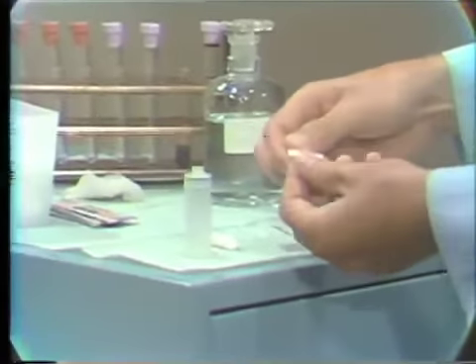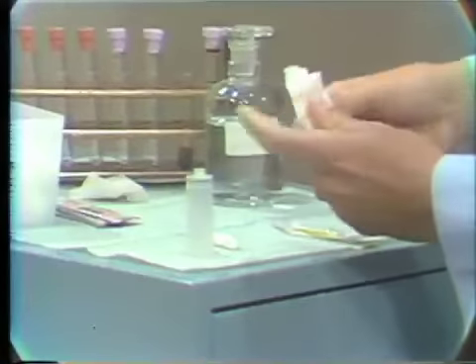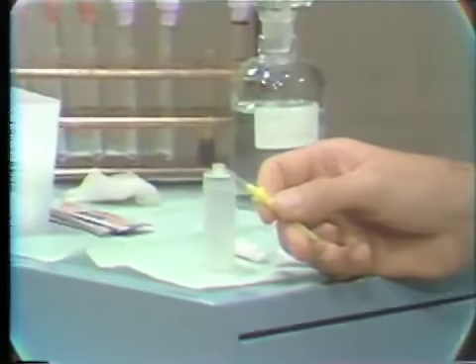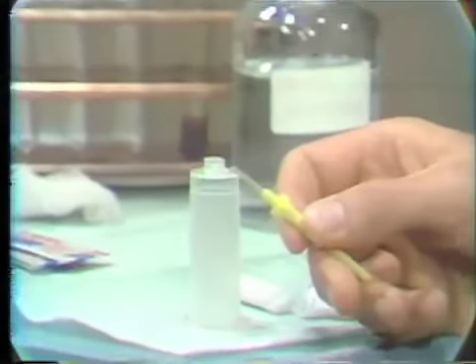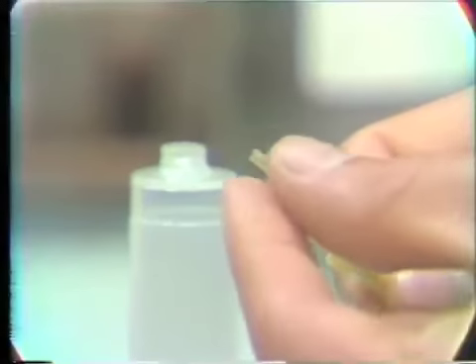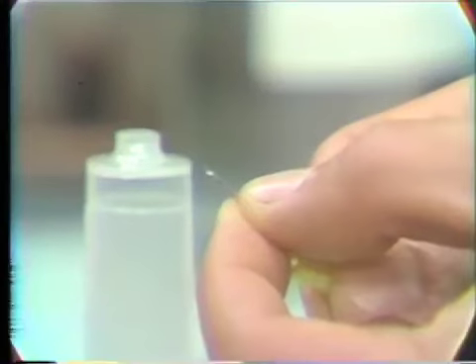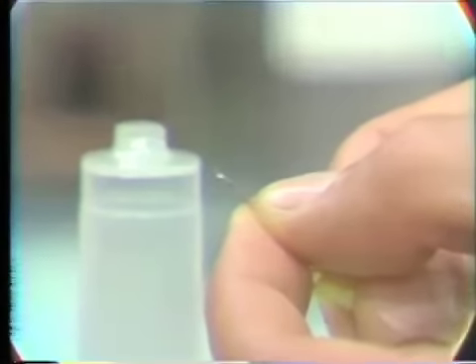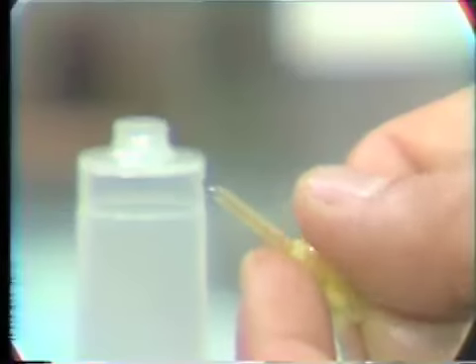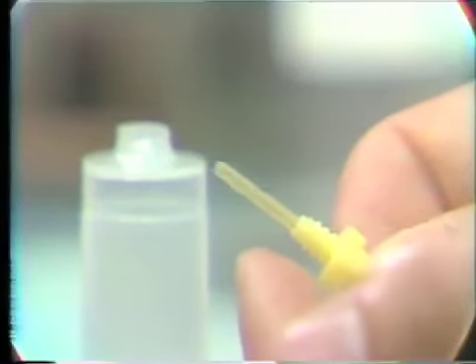I will show you the difference between the two types of needles. This needle has a plastic sheath over the end of the needle that pokes into the Vacutainer. There is a small hole. This plastic sheath can be pulled back, exposing this hole to draw the blood, and then when a Vacutainer is removed, the rubber sheath comes back out and covers up the hole so no blood leaks out on the patient.